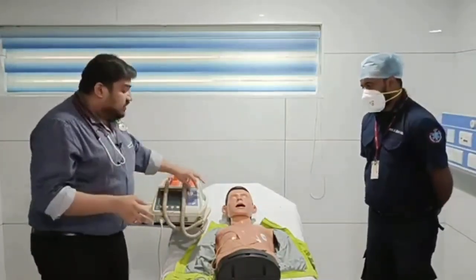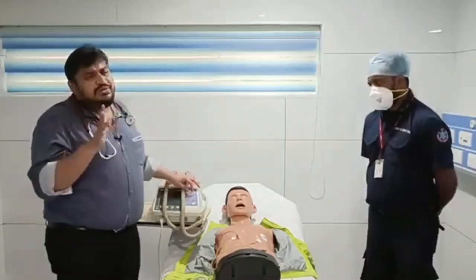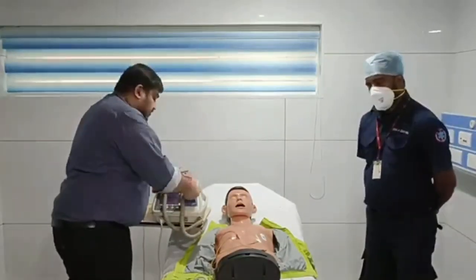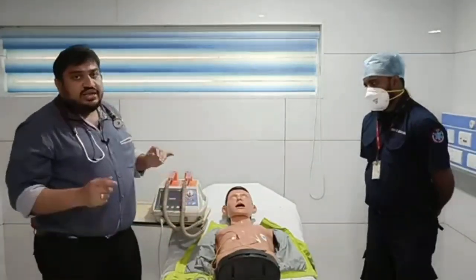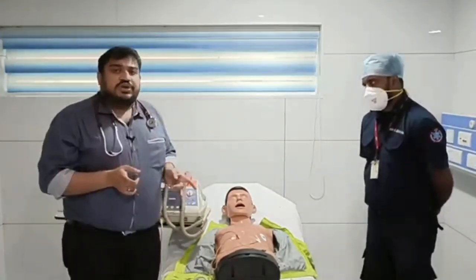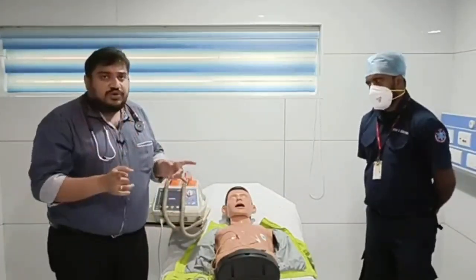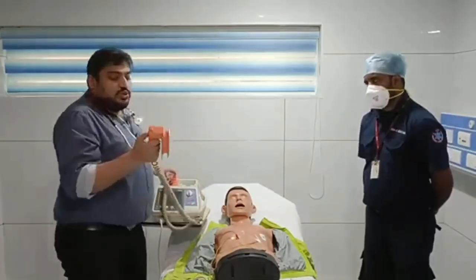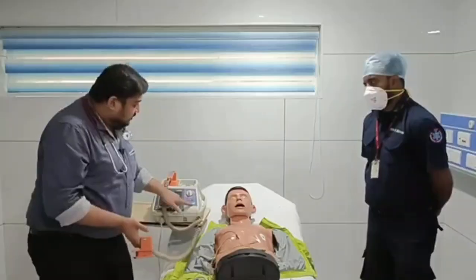And after that, you have to see that it is a shockable rhythm. Okay, now it's a shockable rhythm. You have no doubt in mind whether it is 200, 150, 270. No doubt, just take the maximum joules, whatever is available in the machine, and just go ahead and defibrillate. Before defibrillation, first of all, you have to make sure that the machine, the paddle, is charged. So you have to press the charge button here or the charge button here.